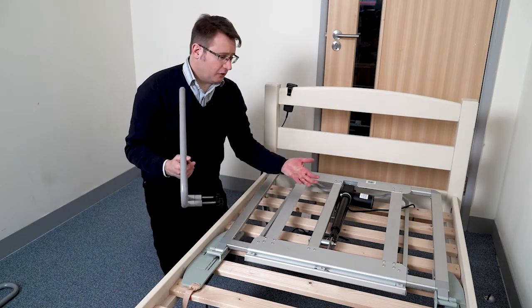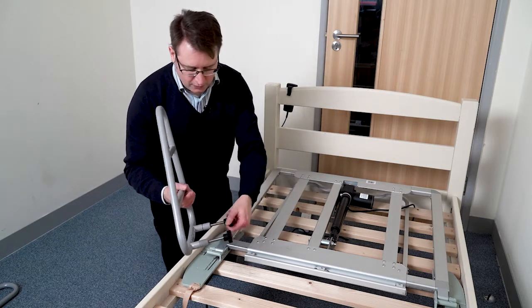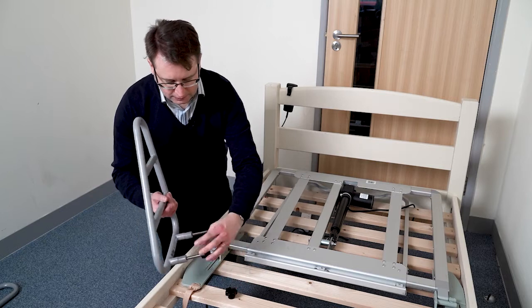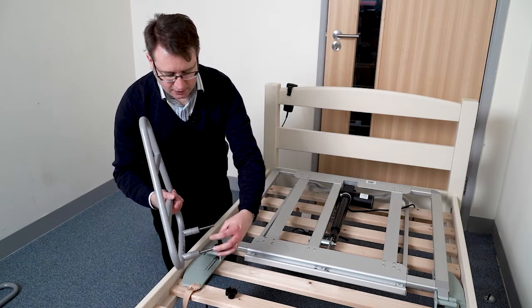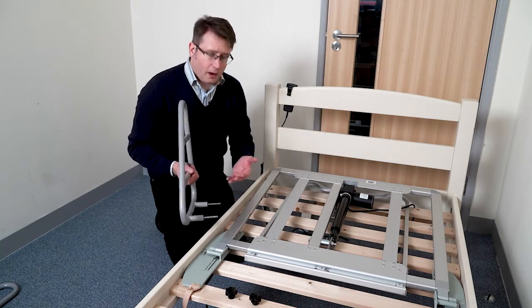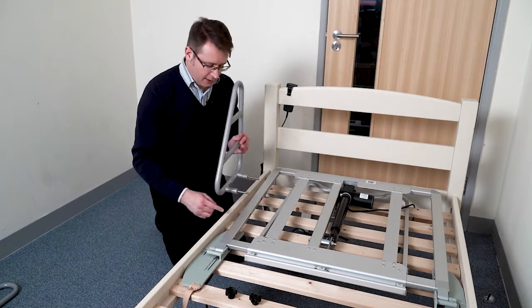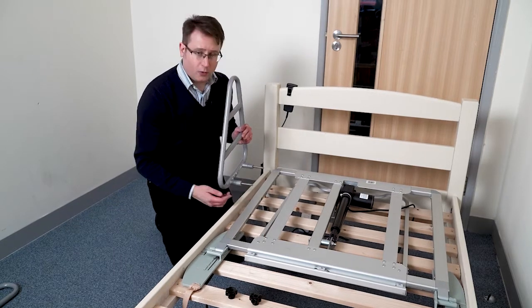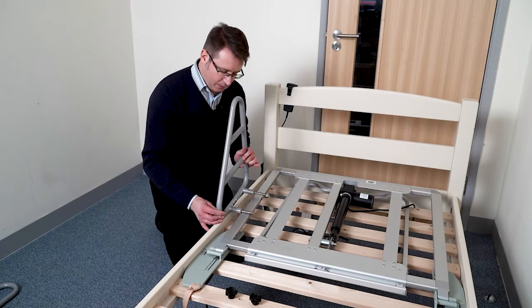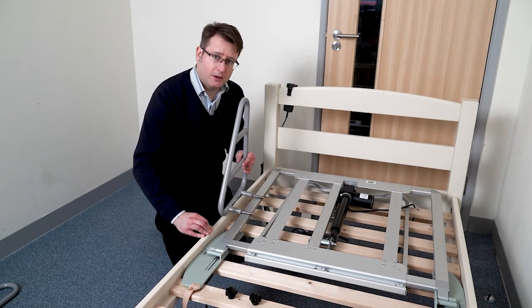They can be fitted at the initial DreamMaster installation or fitted later on. All you do is take the hand wheels off of the threaded rod on both sides, and the only part you really have to think about is these spacers. I've got a slatted bed here. If I left those spacers in place and put the rods through the holes in the trombone, what's going to happen is the rail will come down and hit the wooden upstand at the side of the bed.